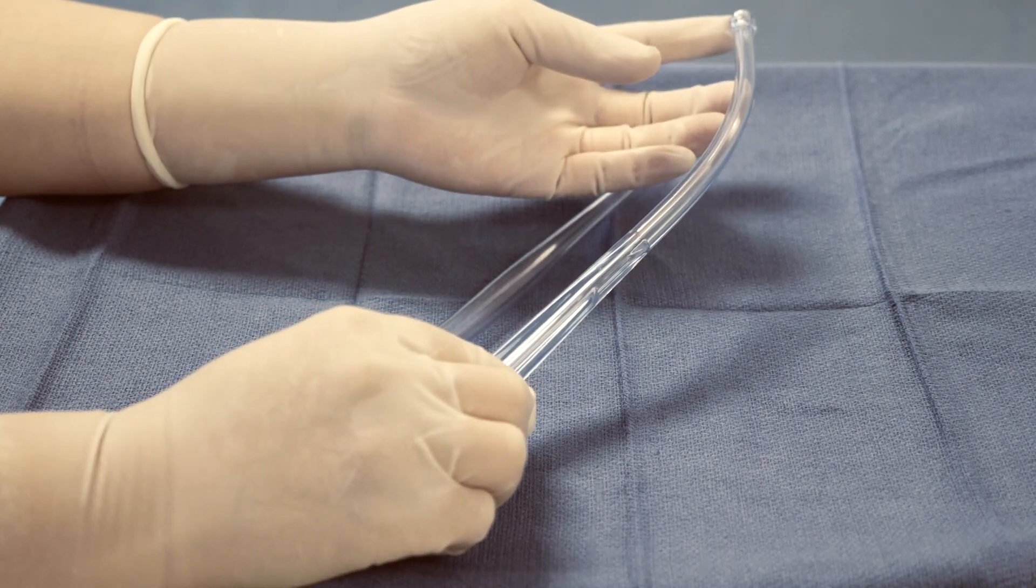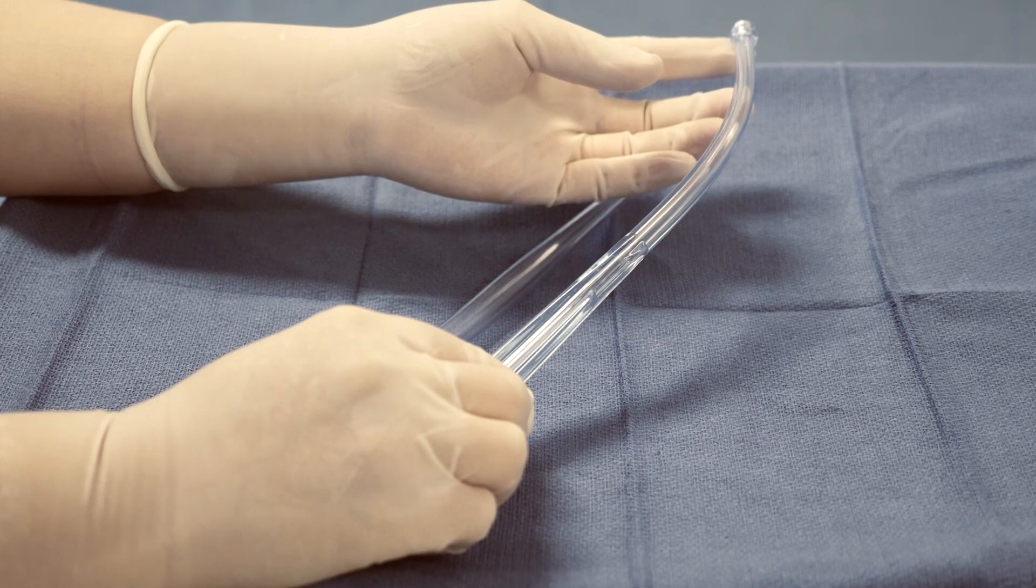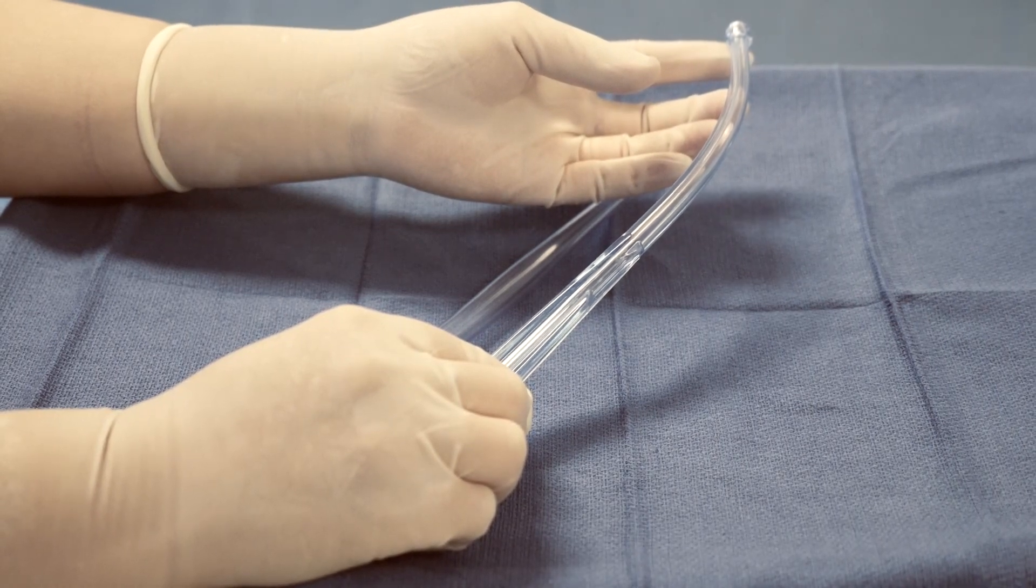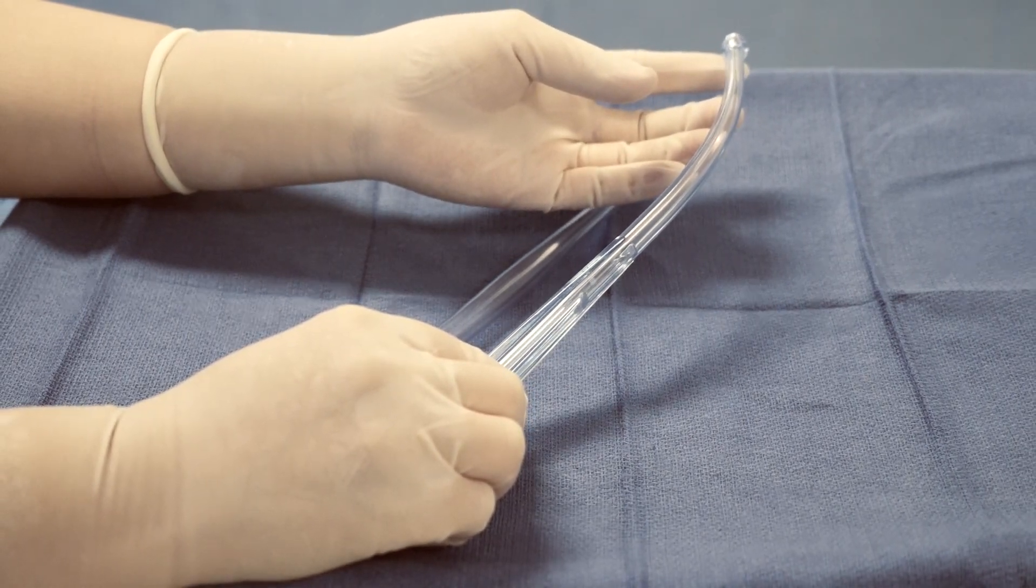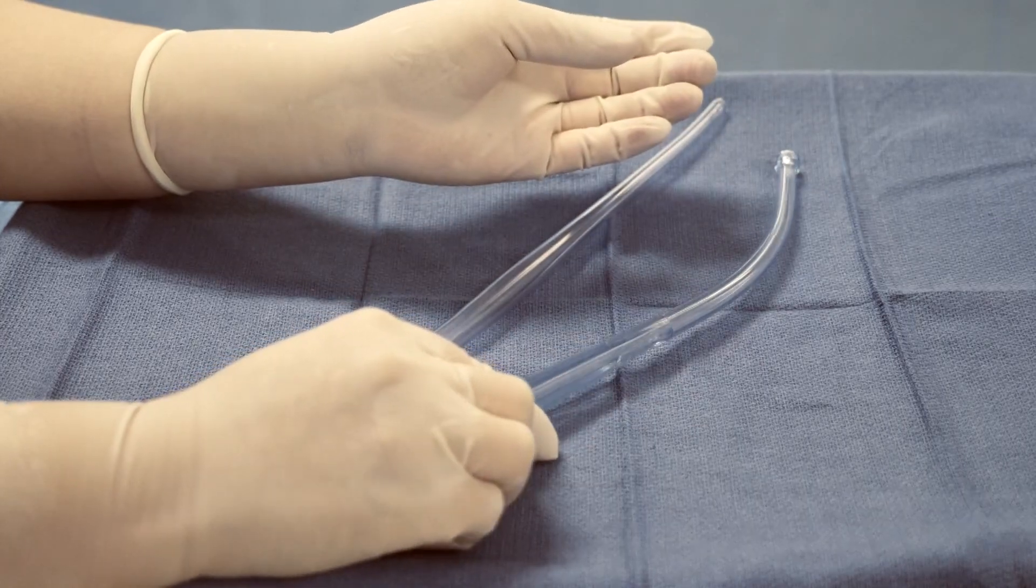They may also use the tip as a dissector to mobilize or dissect some of these structures. Thank you.